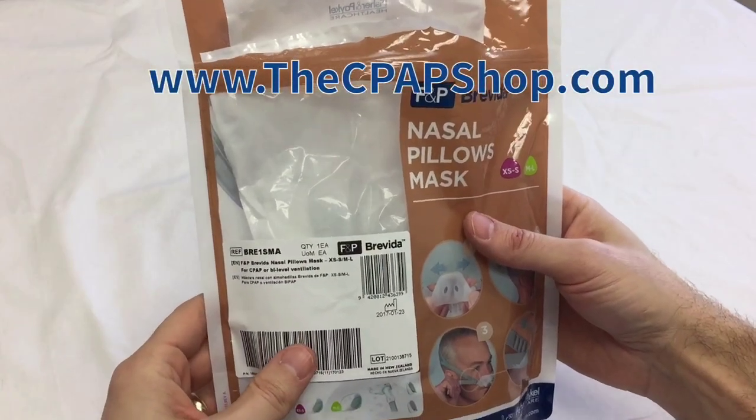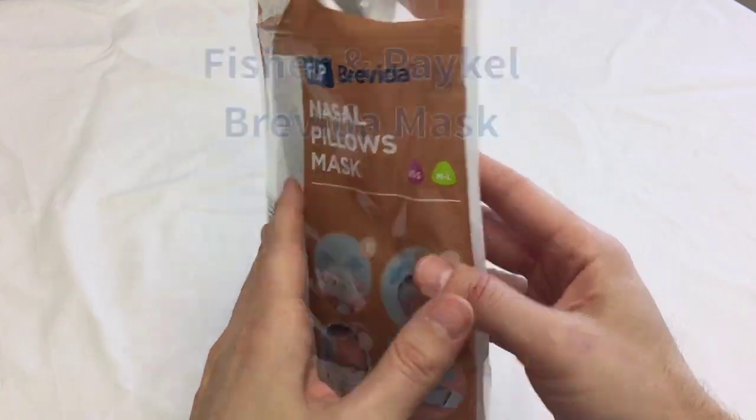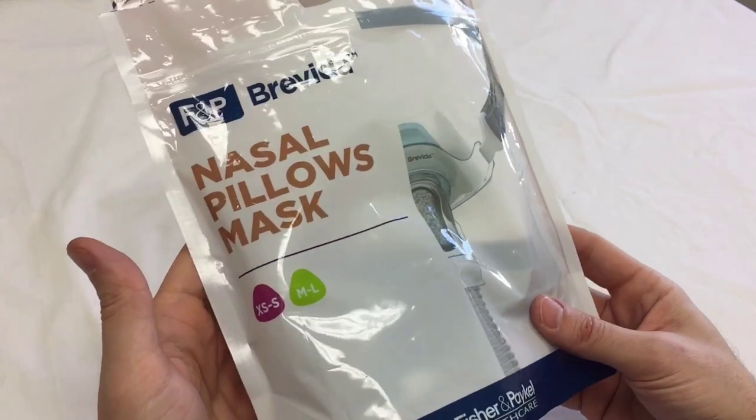Hi, this is Chris from the CPAP shop. Wanted to show you the brand new nasal pillow mask from Fisher & Paykel. This is called the Brevida.